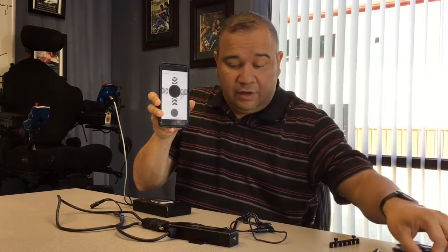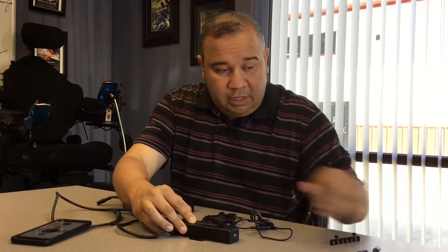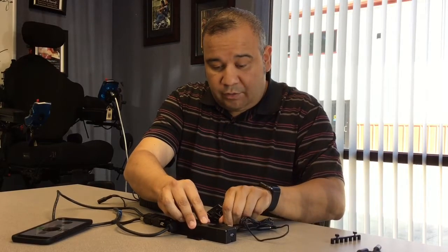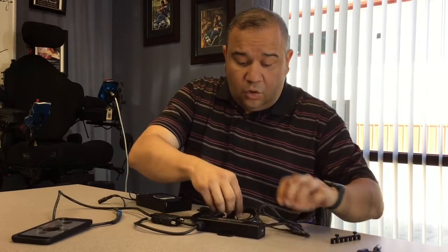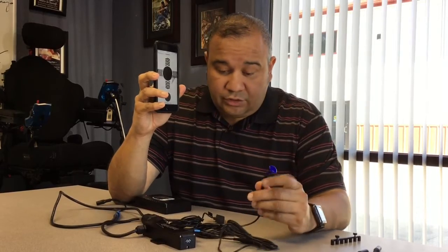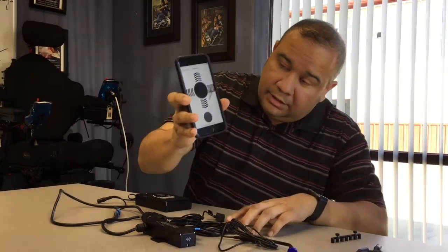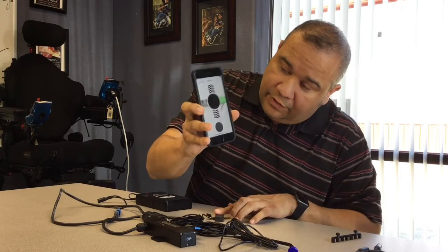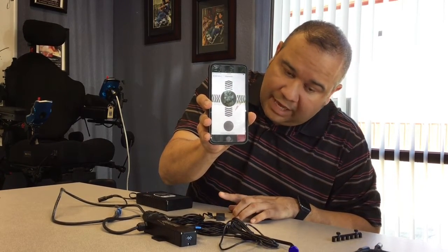So we're going to plug in a sensor now — I've got a sensor right here. We're going to plug this one into port 1. And it's doing left.